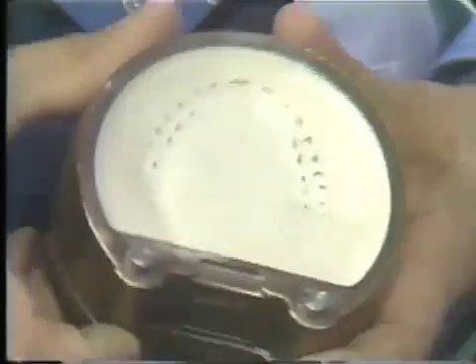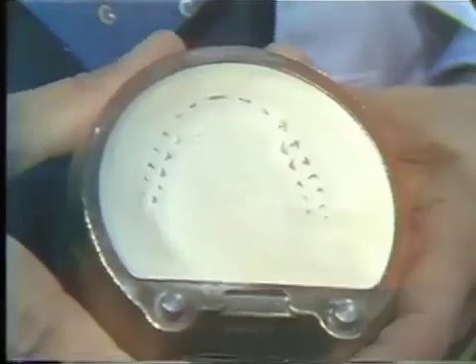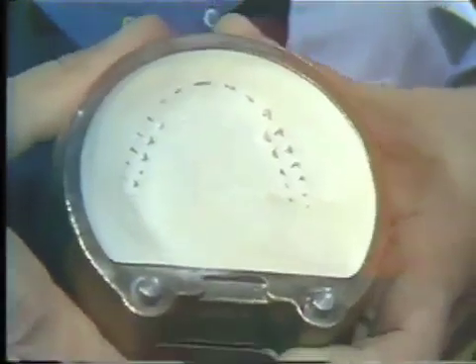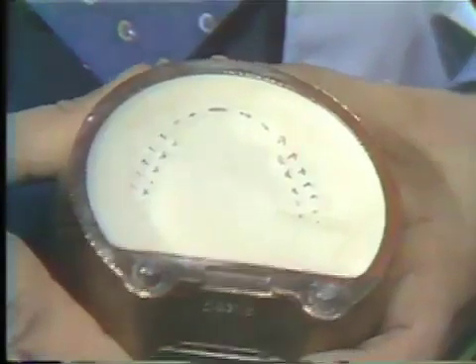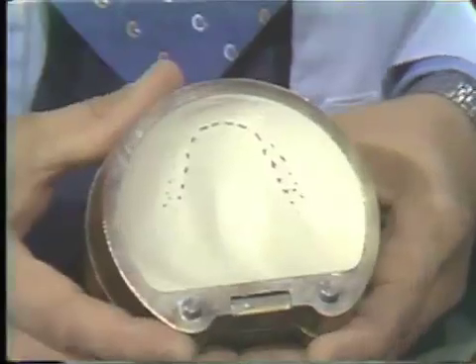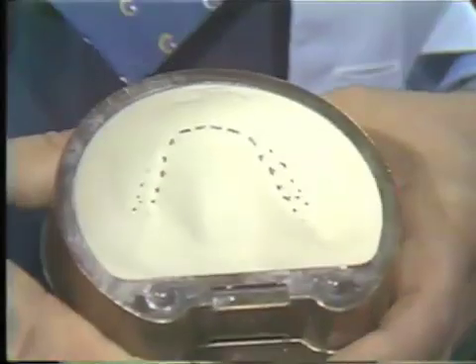In the intervening time, I have completed the second pour. In this pour, we try to expose the incisal edges of all the teeth. The reason the second pour was made with half model plaster and half stone is that the mixture will be slightly softer, and it will be easier to remove after the denture is processed. With the mandibular model, I like to make a slight depression in the tongue space, again for ease of removal after processing.